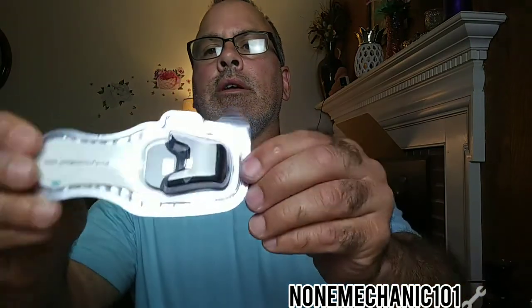I can do other activities because my doctor wants to monitor my heart. It comes with two of these — they look like a fob key. I have number one and number two. While one is fully charged, if the other starts dying on me I just pull it off and connect the charged one. The phone will tell you if the monitor battery is low. It also comes with a phone that monitors everything.